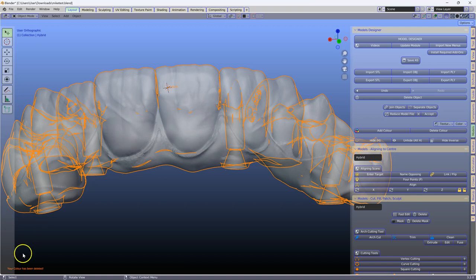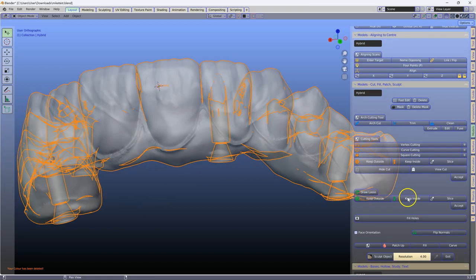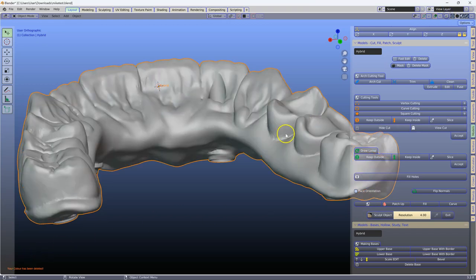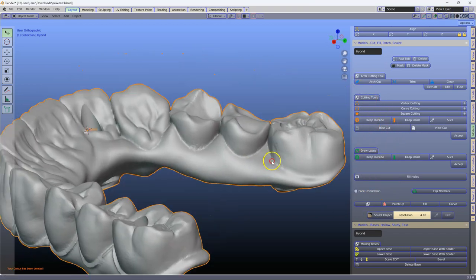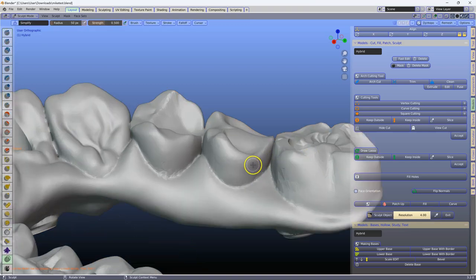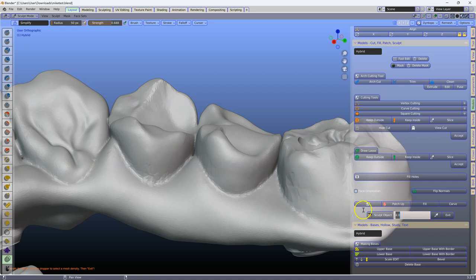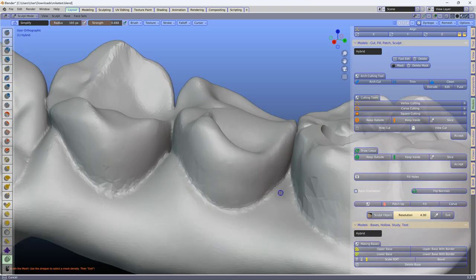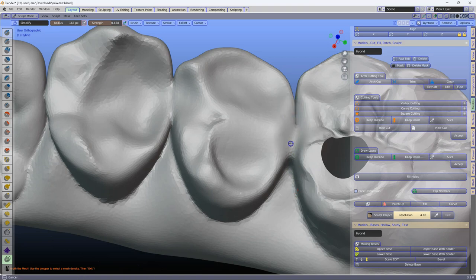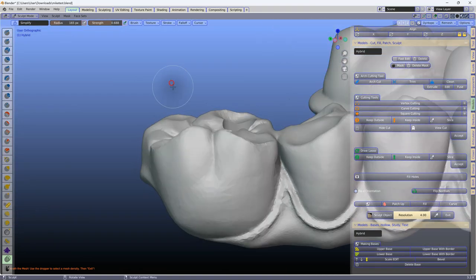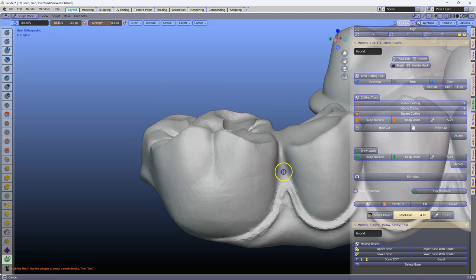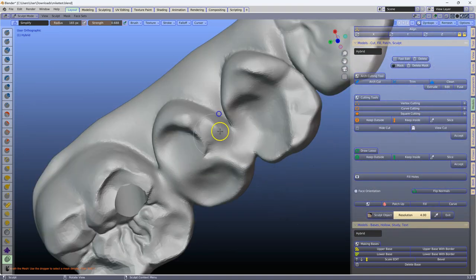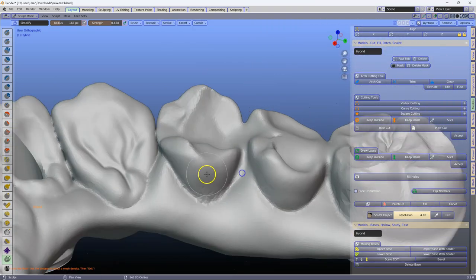Now how do we do this? I'm going to go and use the sculpting method in the model designer. Now if this is designed correctly, we don't have to engage in these measures. I'm going to make the strength a bit higher, and it is very important that you do not go into the holes at this stage. So I'm going to fast forward this video, and then we're going to get rid of the little islands on the inside of this.